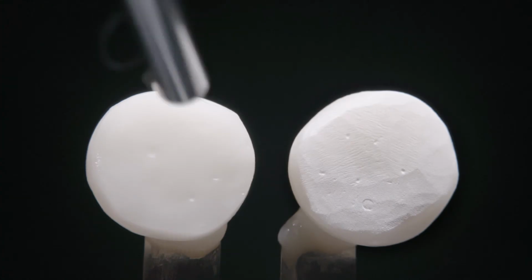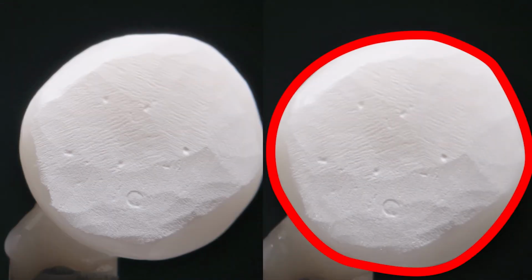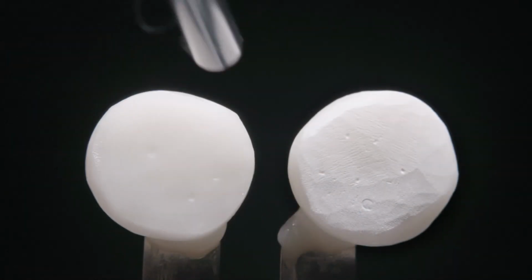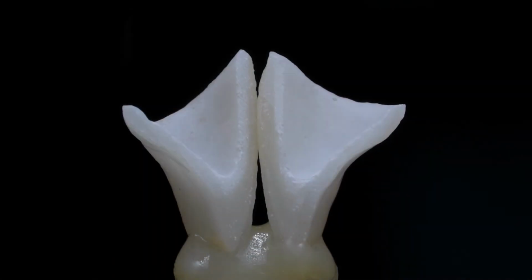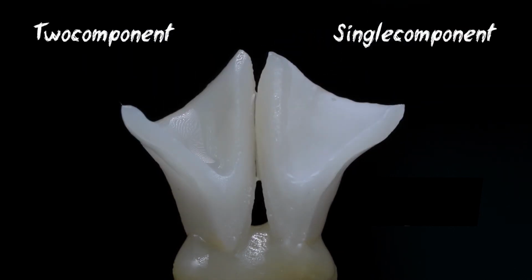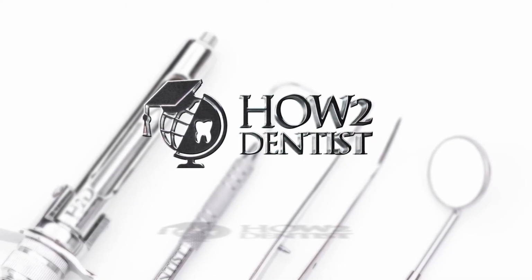As a result of silane application, we can observe a color change of the surface on the left sample, while on the right sample there is none. And as we remember from chemistry lessons, the signs of a chemical reaction are gas liberation, heat liberation, color change. And now take a look at what happens when a drop of two component silane falls on the surface treated by single component. As you can see, the two component silane starts to work and changes the color and texture of the surface.